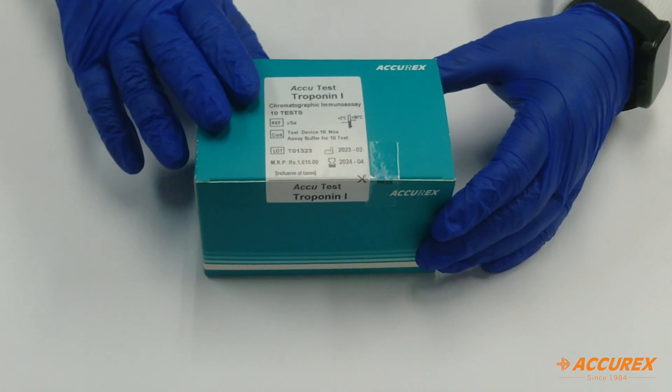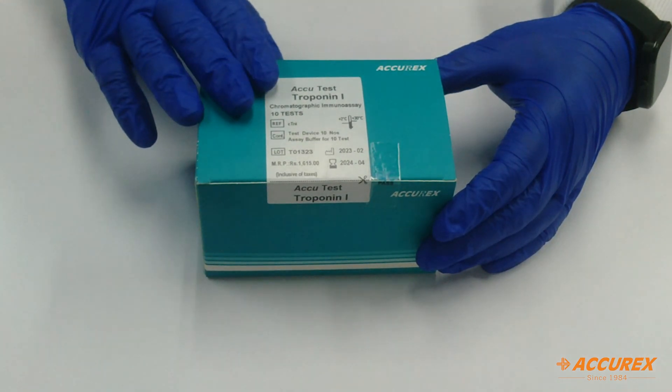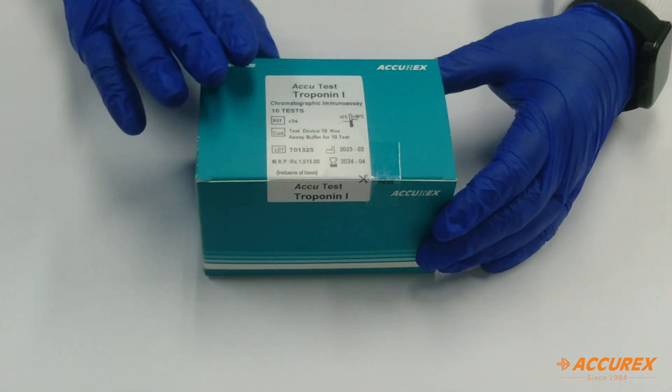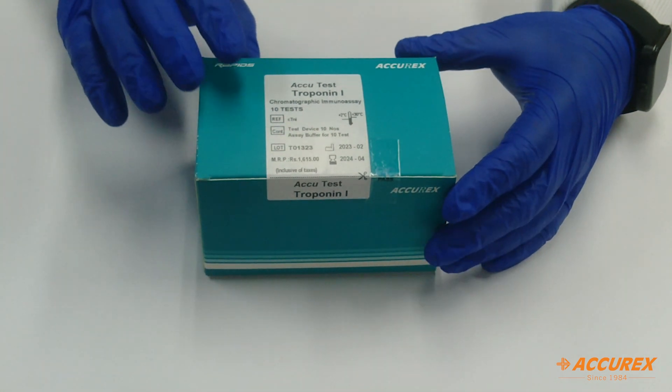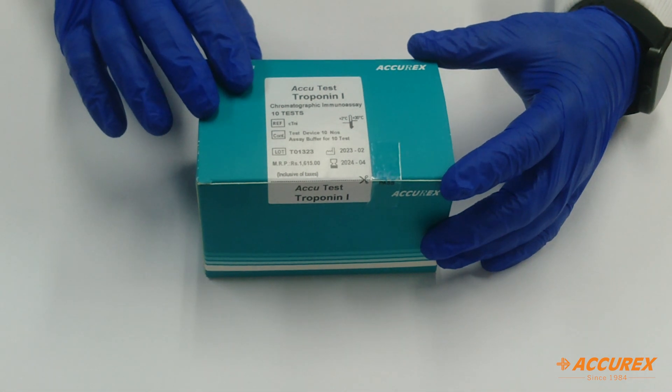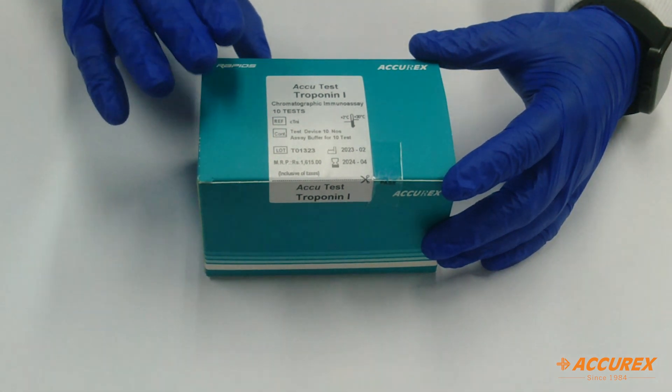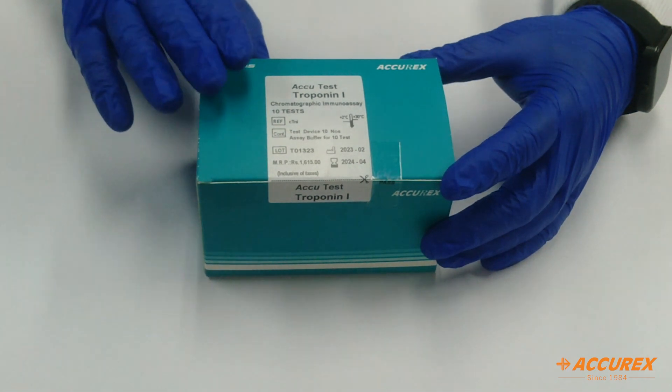Handling and precaution: The pouch should be handled in a proper way. Do not use the pouch if it is found broken or damaged. Do not eat, drink or smoke in the area where the specimen has been handled. Do not use the product after expiration.